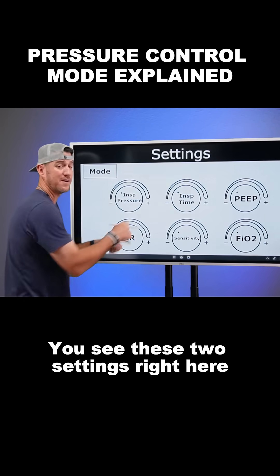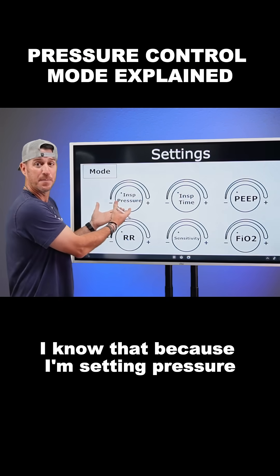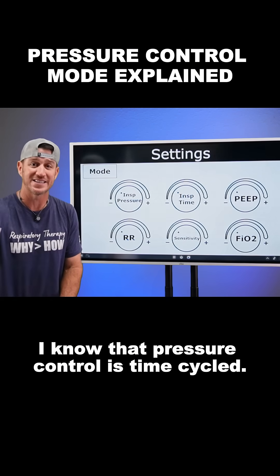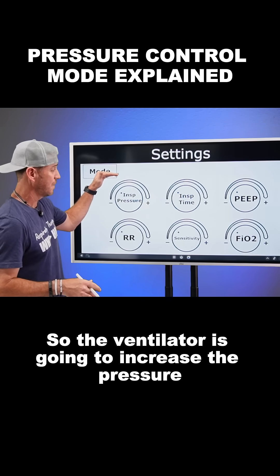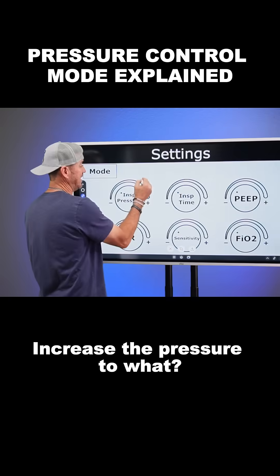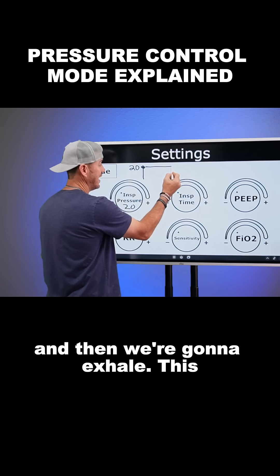These two settings right here tell me as the clinician that we are in pressure control. I know that because I'm setting pressure, and as a registered respiratory therapist, I know that pressure control is time cycled. The word cycle means to end inspiration. So the ventilator is going to increase the pressure and then hold it for the set I-time — it'll look something like this. Increase the pressure to the set inspiratory pressure, so we raise to 20, hold it, and then exhale.